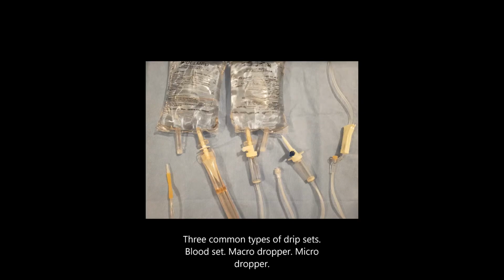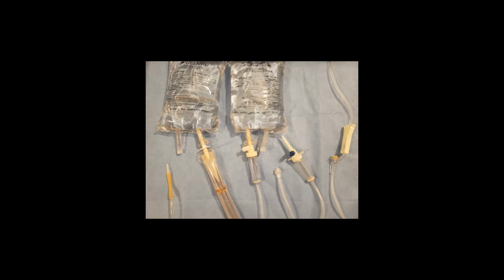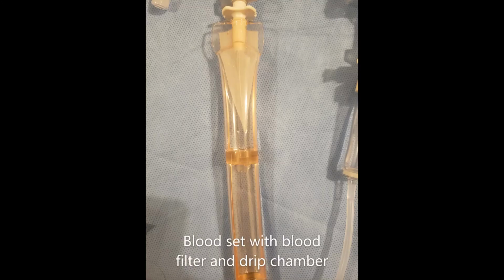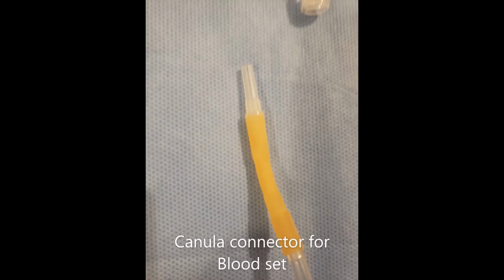A little about drip sets. Here we can see 3 common options: the blood set, the macro dropper, and the micro dropper. The blood set has a blood filter and a drip chamber, unlike the other sets that only have a drip chamber. Blood components must be filtered during transfusion to remove clots and small clumps of platelets and white blood cells that form during collection and storage. The patient end of the blood set has a cannula connector.